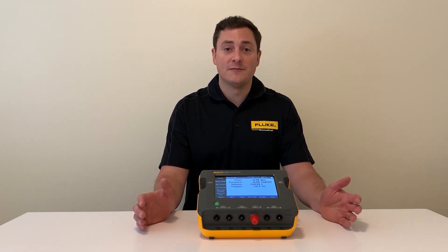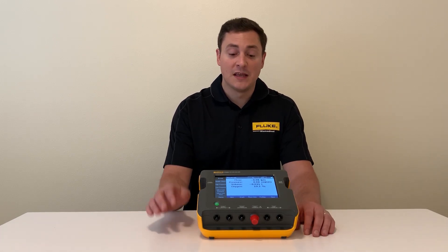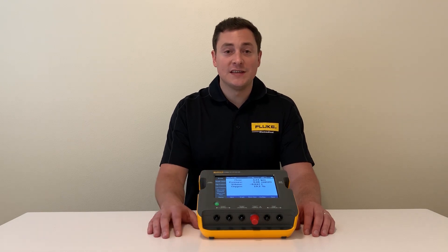The first innovation is warm-up time. There's no need to keep your gas flow analyzer plugged into the wall to keep the sensors warmed up — the unit warms up essentially instantaneously.